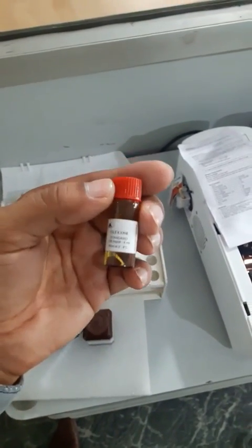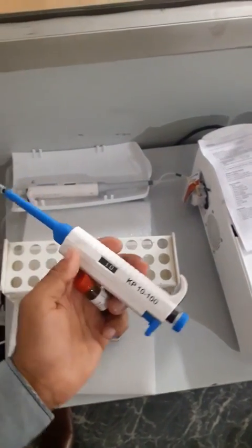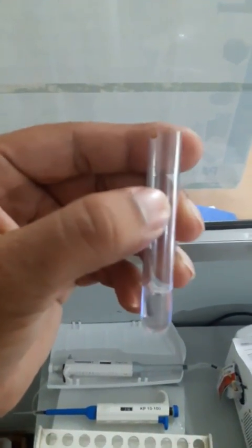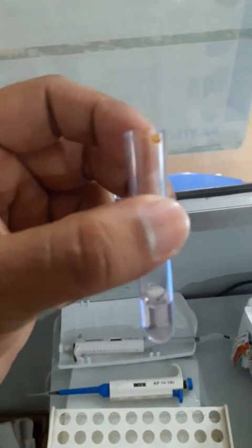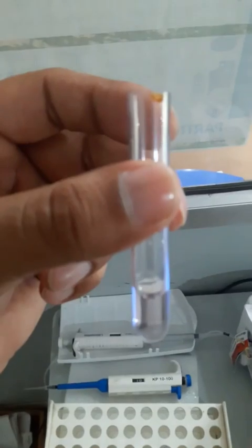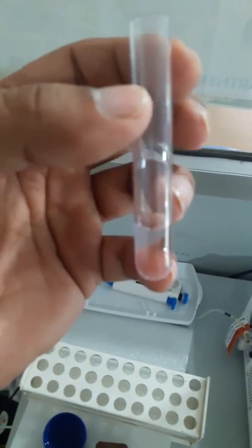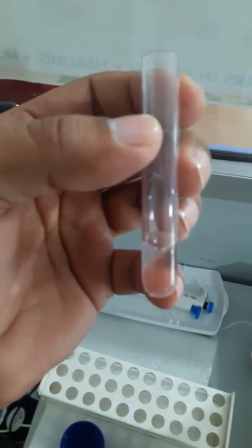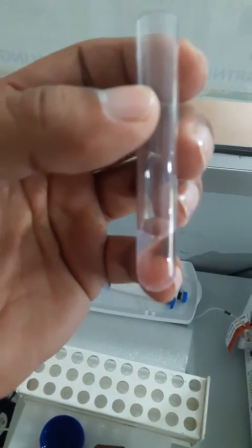This is our standard and I am going to mix 10 microliters of standard with this micropipette. Now I have mixed the standard into this test tube — reagent and standard are in there. We will incubate this solution for 10 minutes at 37 degrees Celsius as per the literature. This is another mixture of reagent and blood serum sample, which we will also incubate for 10 minutes.